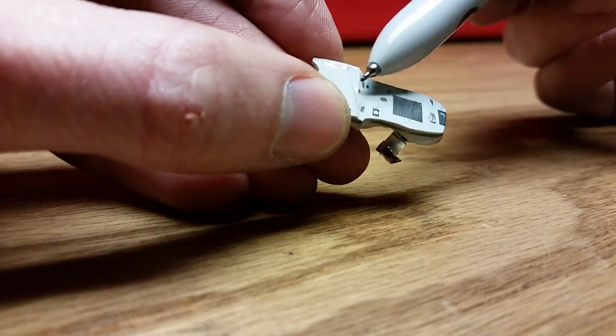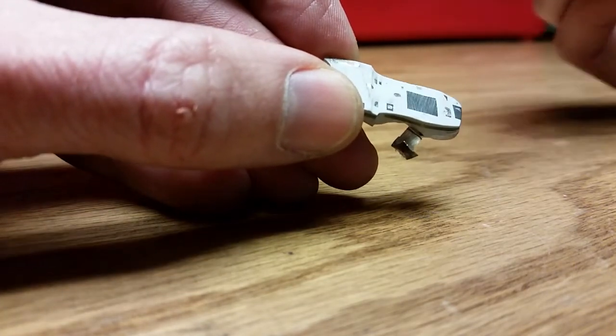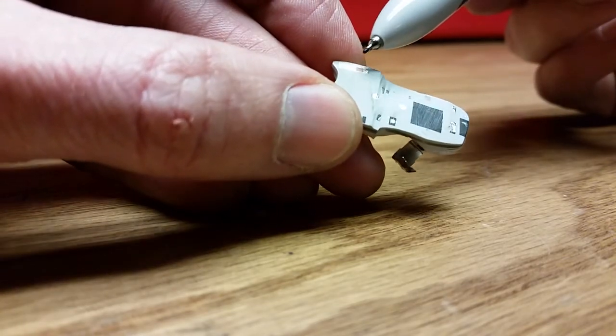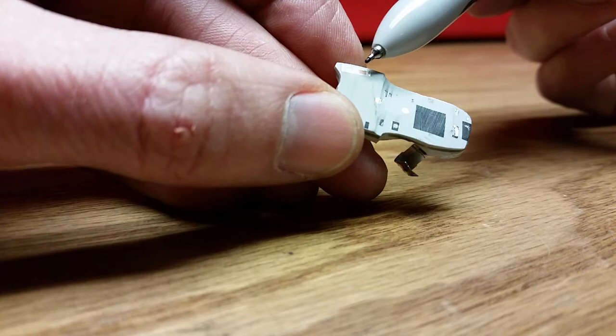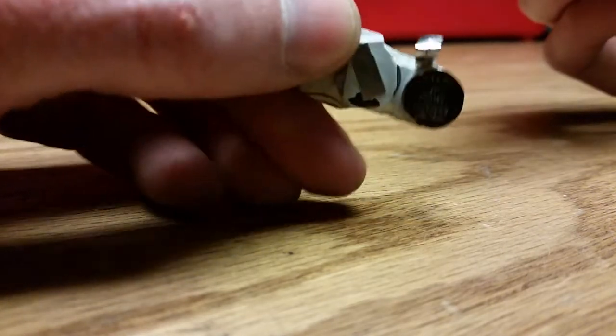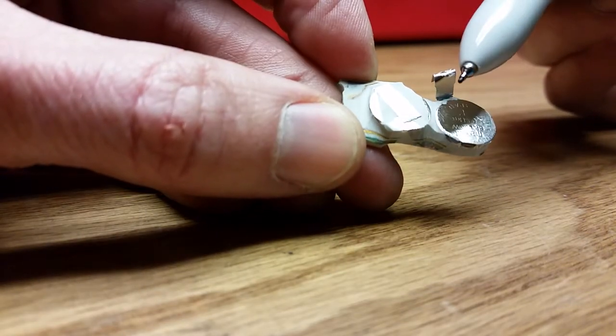Here are two contacts that actually make it out. Obviously this one I'm not going to bother trying to change the batteries on because I've ground through a lot of the components — it's obviously dead. I'm guessing this loaded section here is a little loading coil, and I think this is actually the antenna that talks to your phone or to the Dexcom CGM sensor itself.